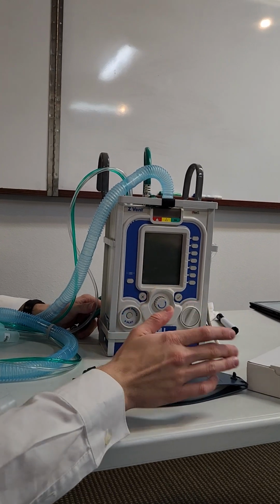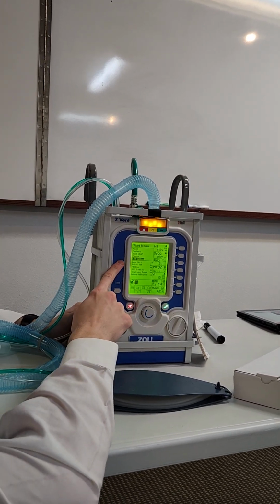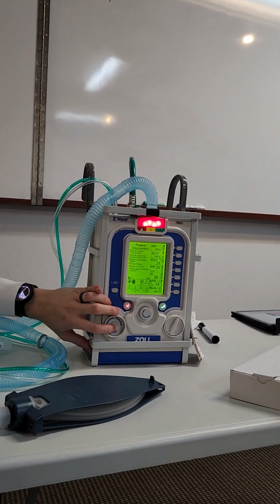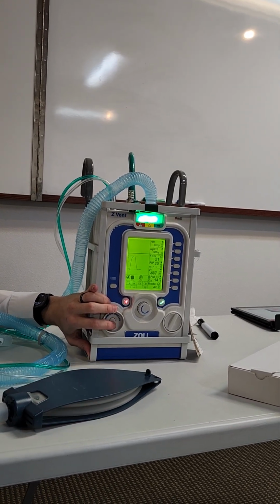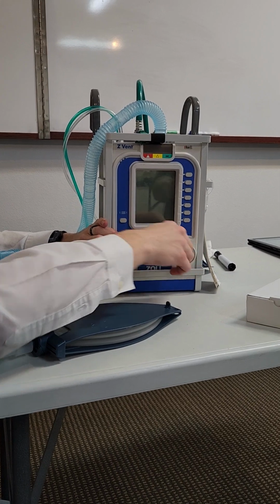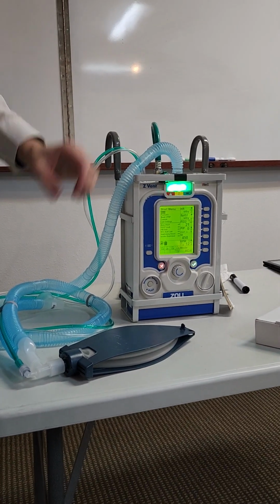The other thing is, you already had your settings set, right? What you can do is you can come straight down to last settings. And when you click that, it'll go straight to that setting that you were just on. So even if you're in that alarmed position, the system's pissed off. It doesn't like what you're doing. You've gone into backups. You can go hit that last setting, or you keep turning it on and off. Right. So the reason I'm trying to follow what you're doing while you're doing this is, I'm missing something.